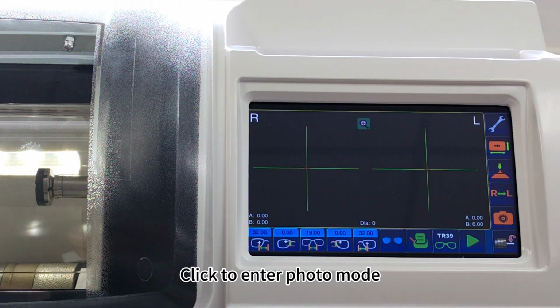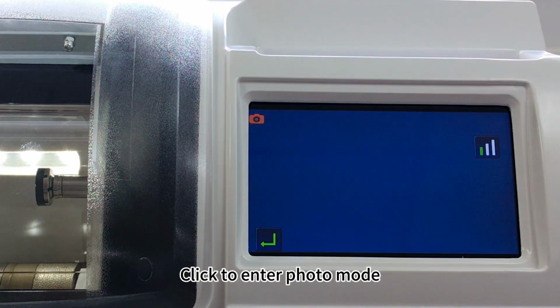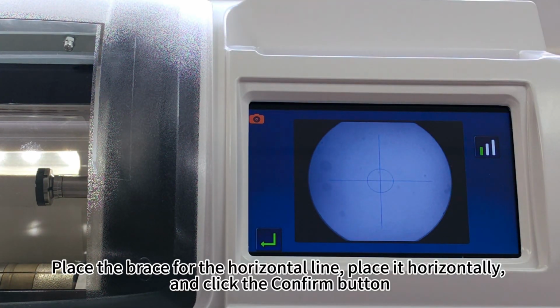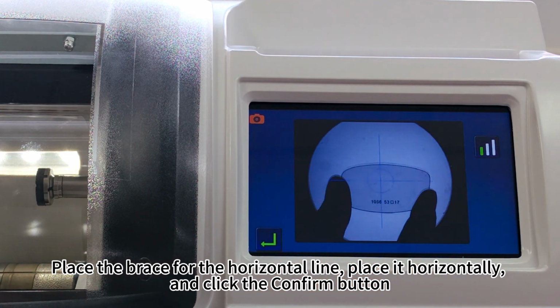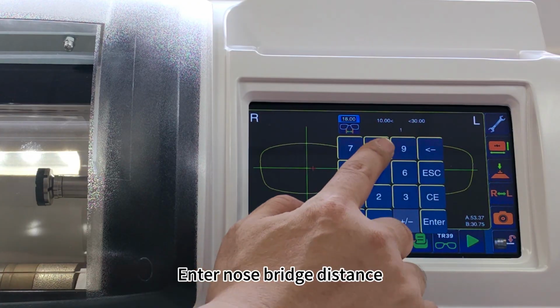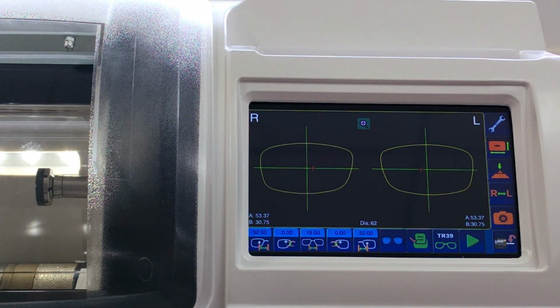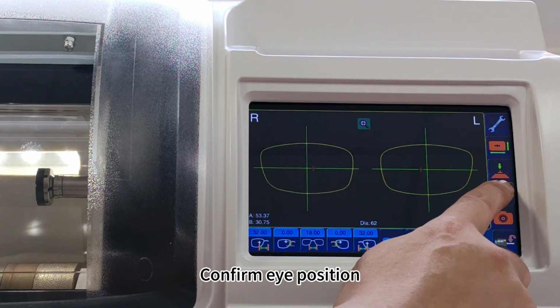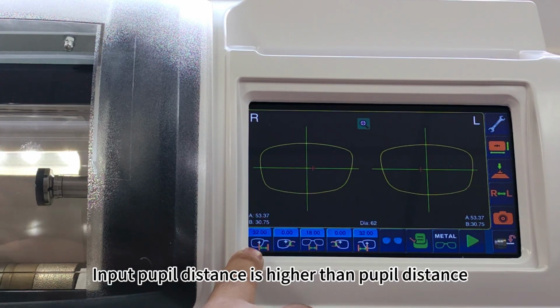Processing of photo, scanning of lining plate. Click to enter photo mode. Place the brace for the horizontal line, place it horizontally, and click the Confirm button. Enter nose bridge distance. Confirm eye position. Input pupil distance and pupil height.